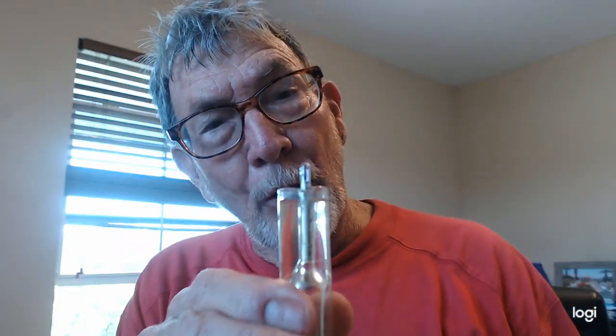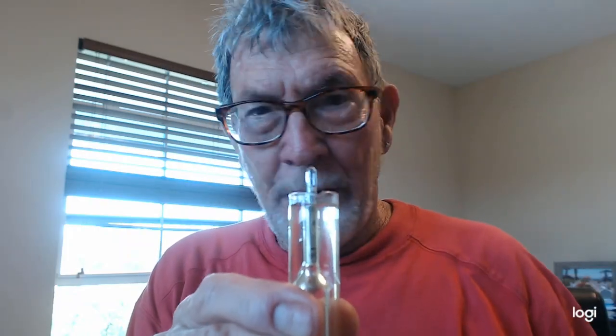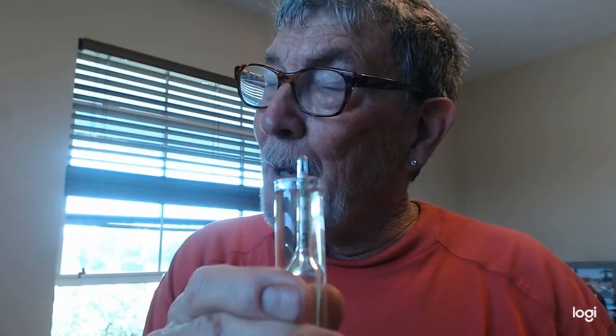But you can imagine, the one right below there that you're seeing is that 20. So the 20 is a little bit below, the 1.010 is a little above, but all you do is read your scale at the level where it's floating, and that tells you what the specific gravity of this urine sample is. And since this is halfway between 1.010 and 1.020, it's about 1.015, so it's just about perfect. That's about where you want your specific gravity to be. So this person would not be either overhydrated or underhydrated.